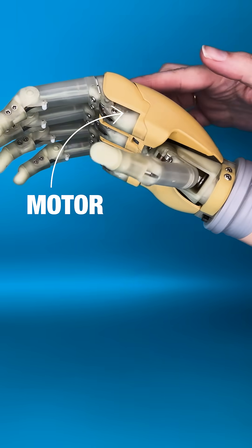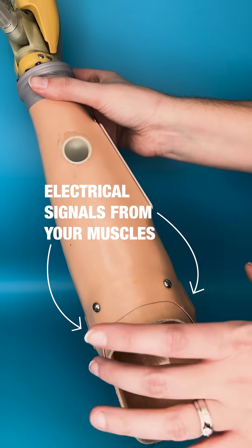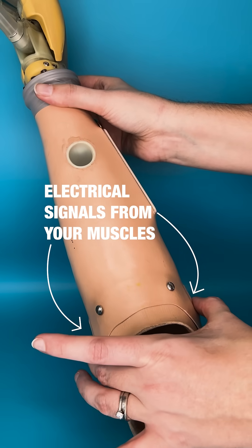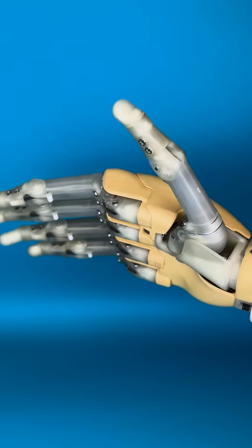The other is an electrical solution with a motor and batteries which work using the electrical signals generated by your muscles. These are the most advanced solution but they take a bit of training to learn to use.